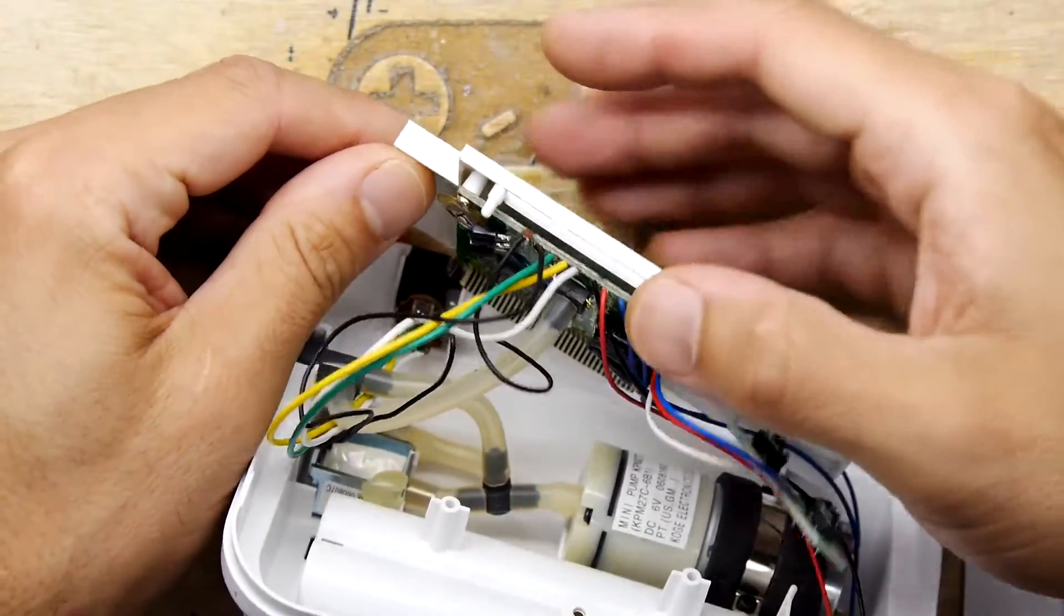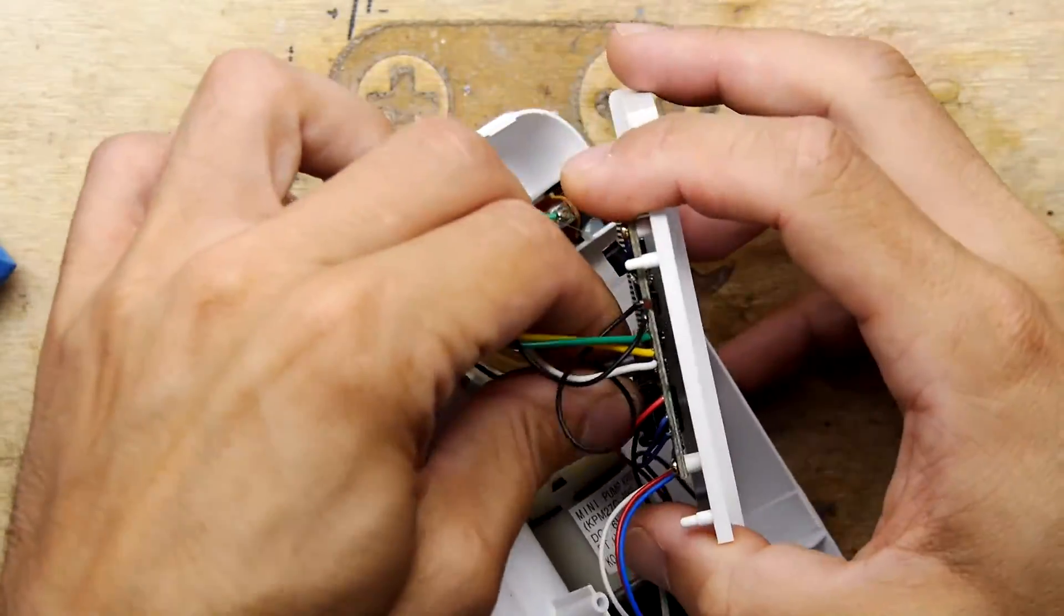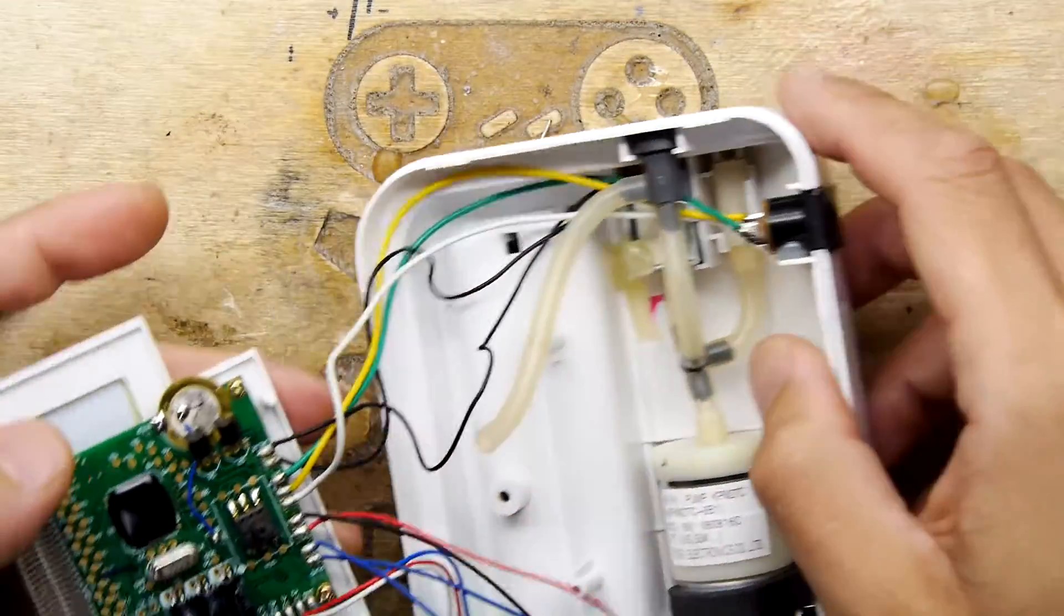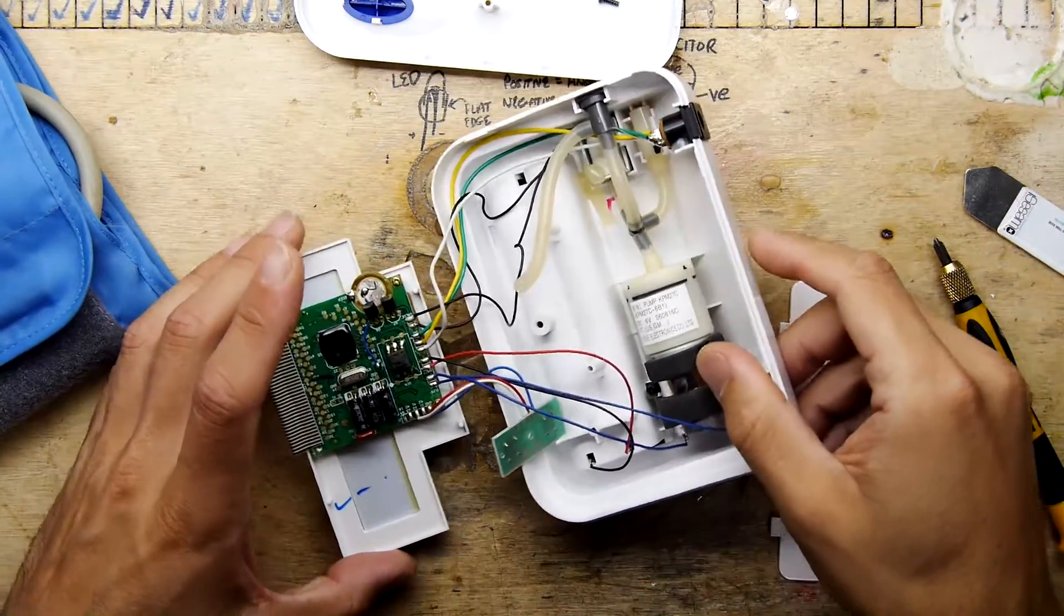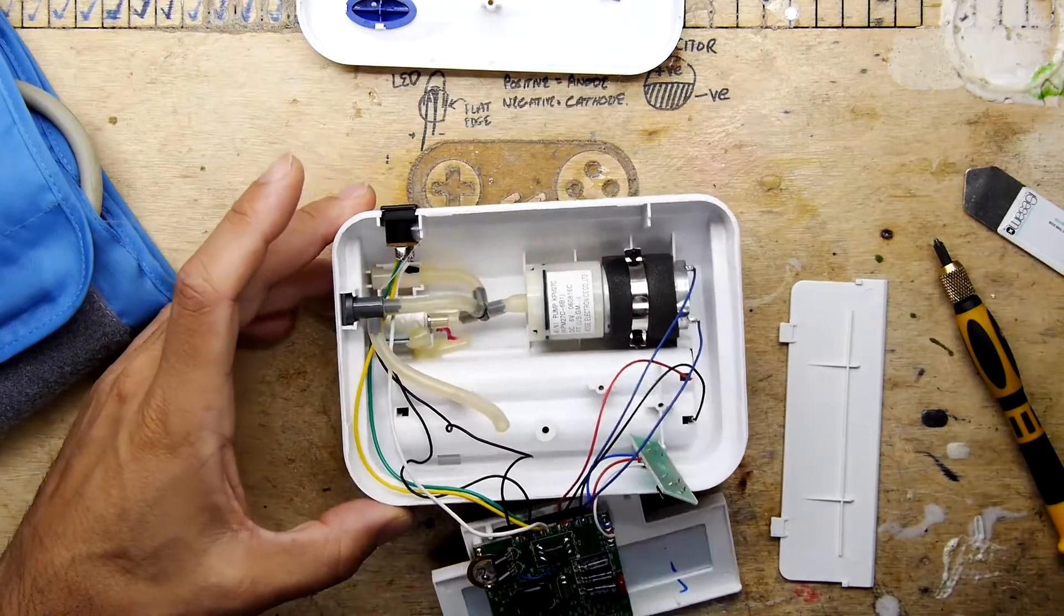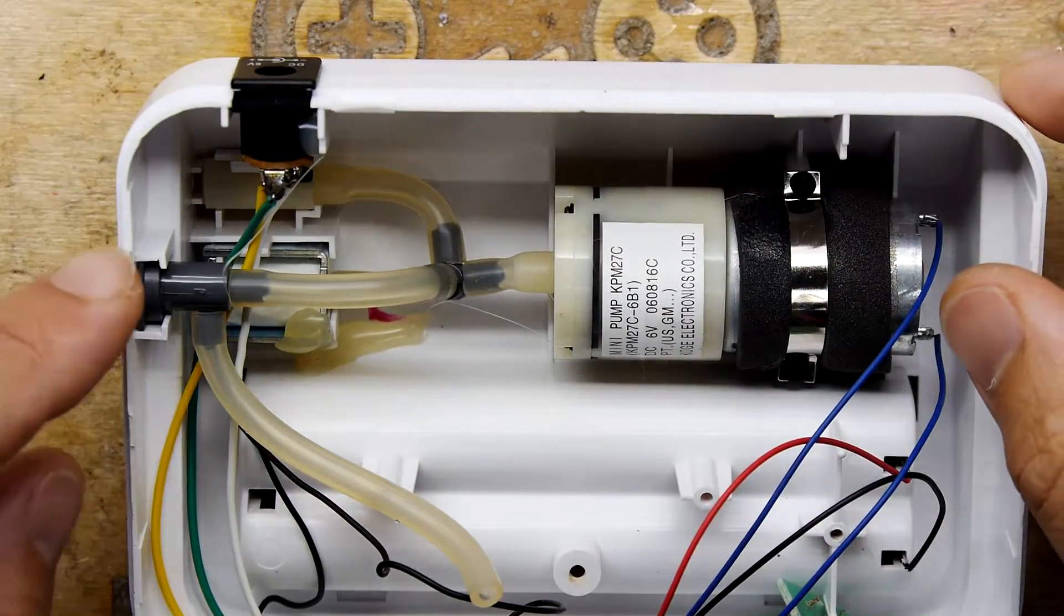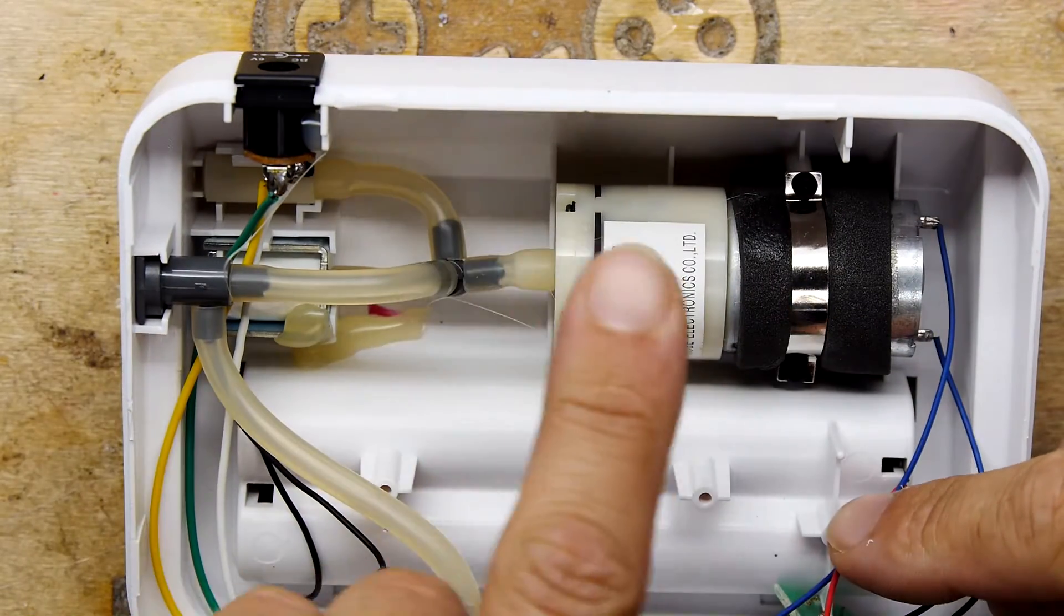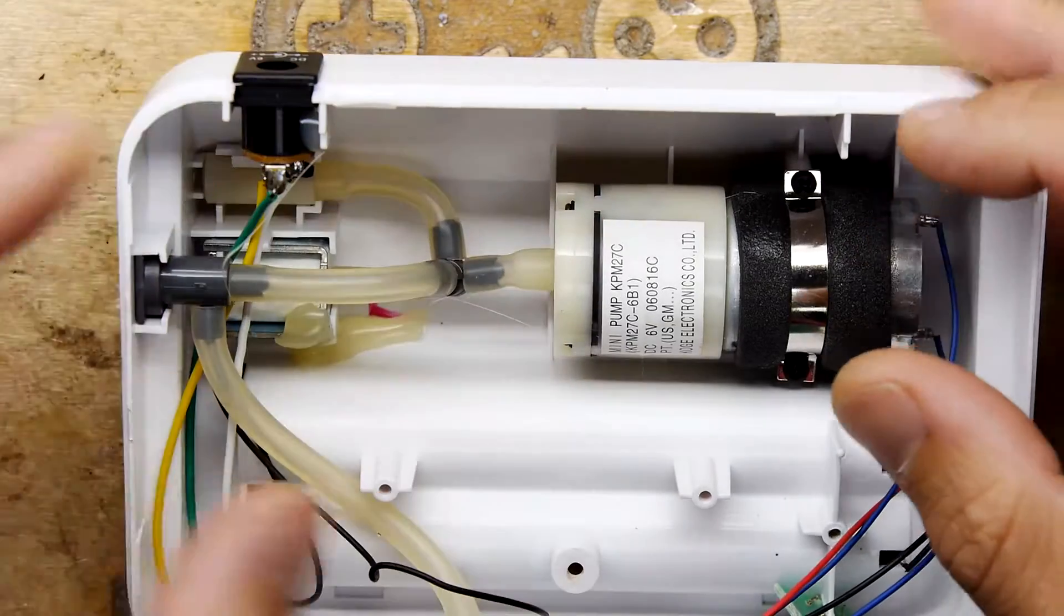This is one of those really nice things to get hold of if you ever get one, because it's got so much fun parts in it that are pretty tricky to buy, really. I don't know even where I'd go to look for these parts, but let's cover them one at a time. Let's start at the mechanical end. So I'll zoom in and back again so you can see from the top. So this is the output port. So here you've got a motor with an air pump. So cool as hell to have that.